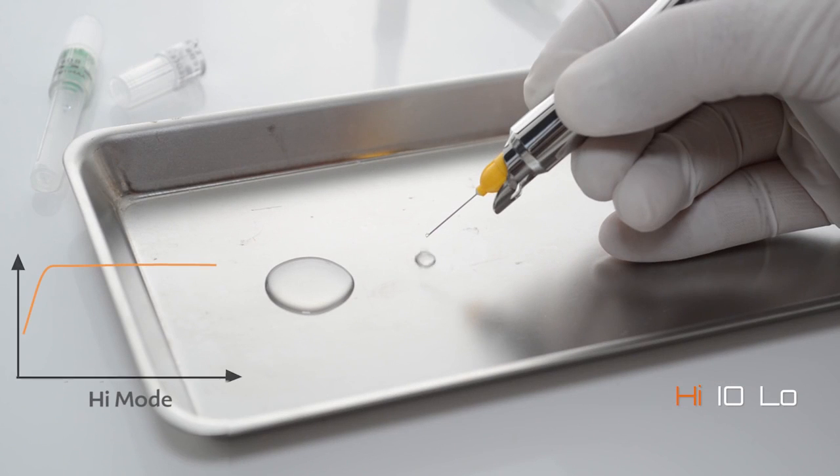In high mode, you can perform infiltration and nerve block anesthesia in the soft tissues with a higher speed of injection.